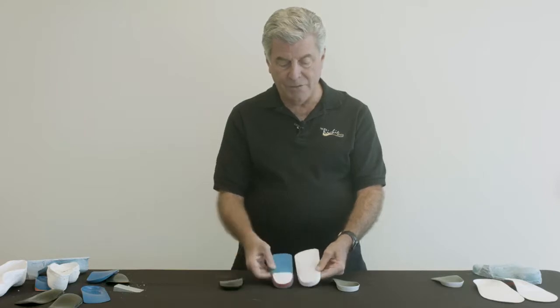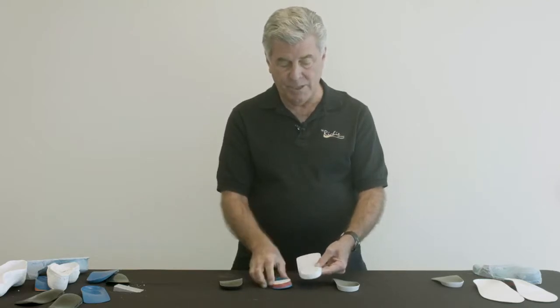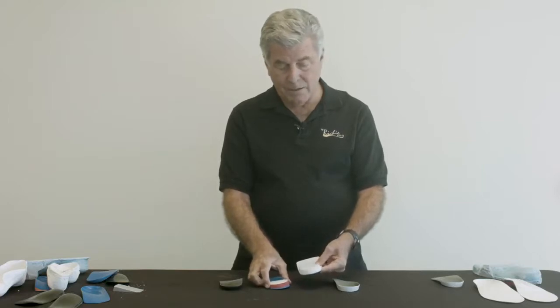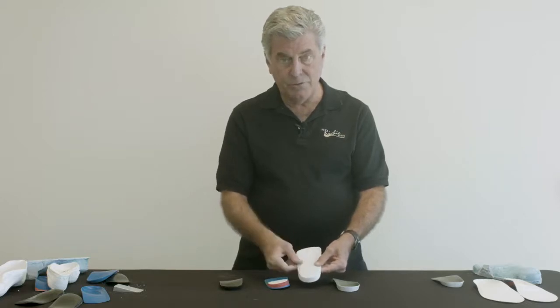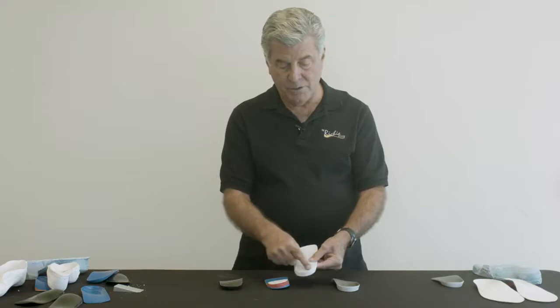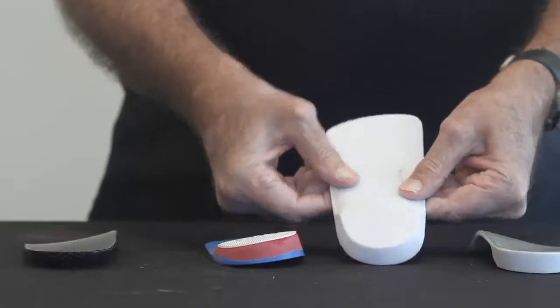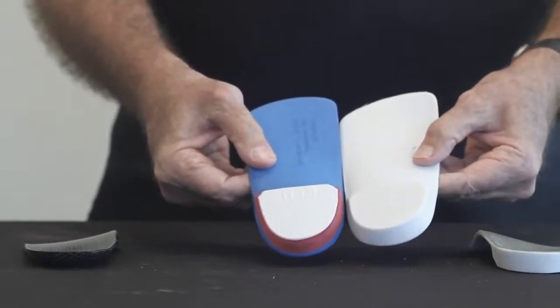What are the advantages of an intrinsic post versus an extrinsic? Pretty much overall stability of the device because it's all one unit, more durability, and the practitioner still has the ability to make modifications. It can be ground slightly in the office to increase the amount of motion, and material can be glued onto the post to increase correction. So it has quite a bit of versatility compared to the more traditional extrinsic post.